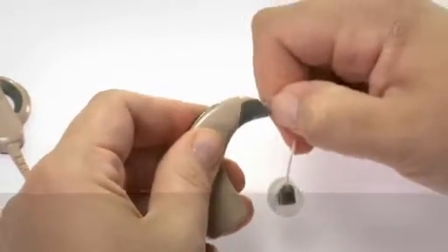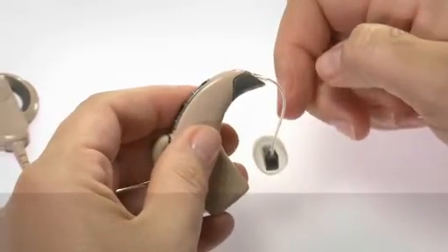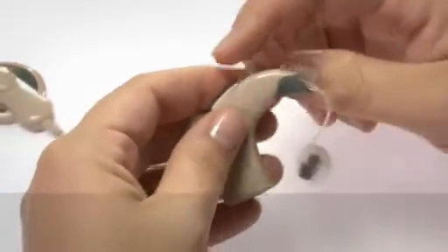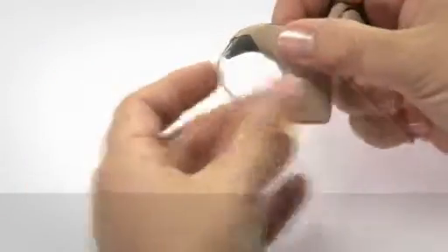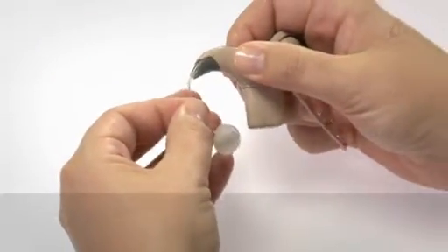If necessary, carefully push it in until you feel the click. Pull gently on the cable to check that it is securely in place.